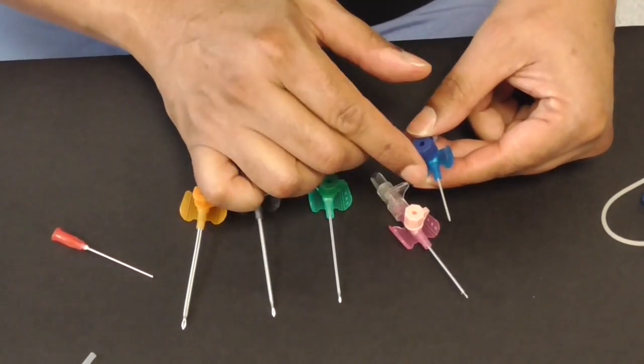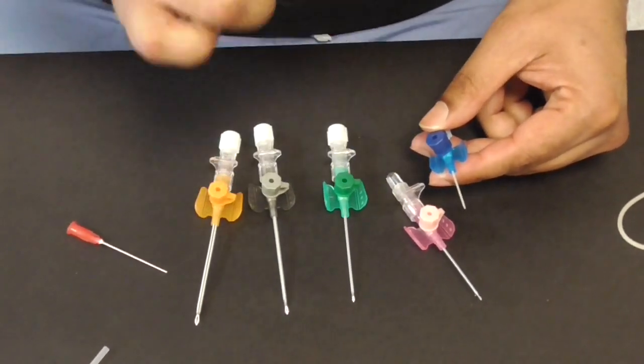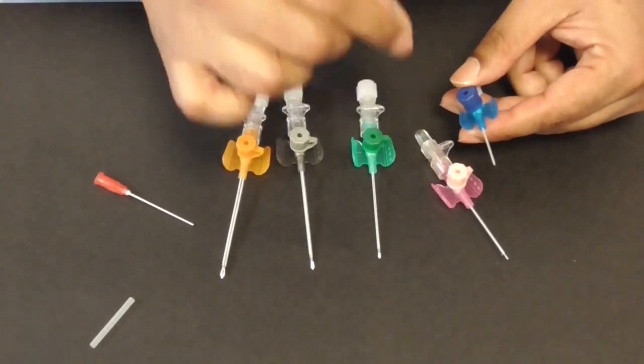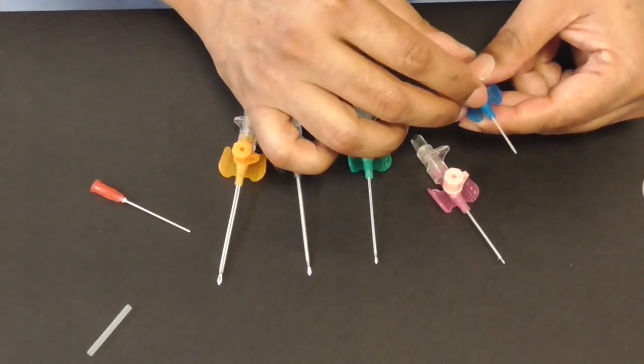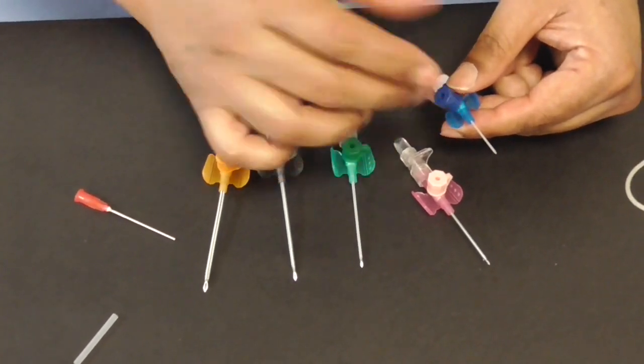Remember that once you put intravenous cannula we need to document when you've put it and that it must then be taken out after a stipulated period of time as designated by NICE guideline to reduce the risk of IV site infection. Thank you very much. And that, dear viewers, syringes needles and intravenous cannula venflons in a nutshell thank you very much.